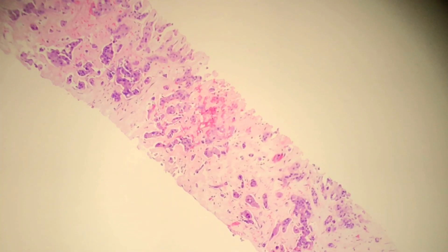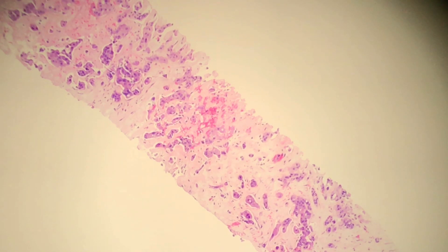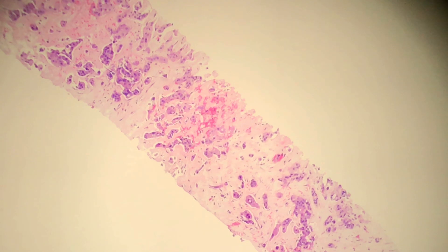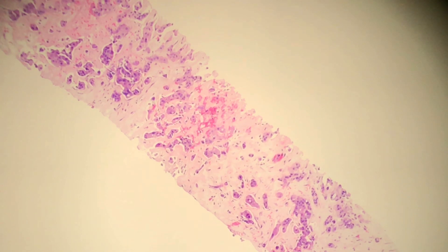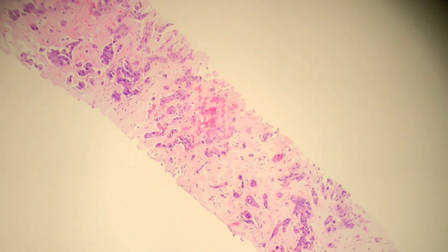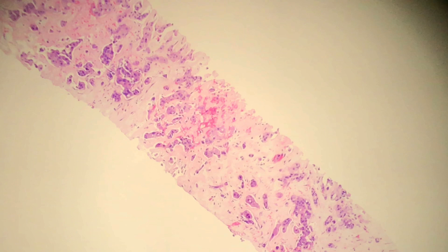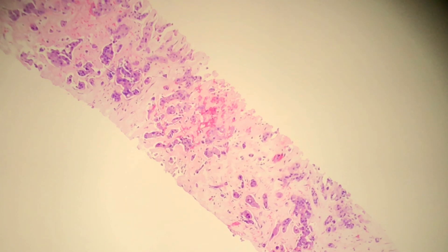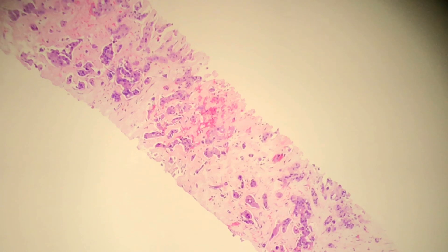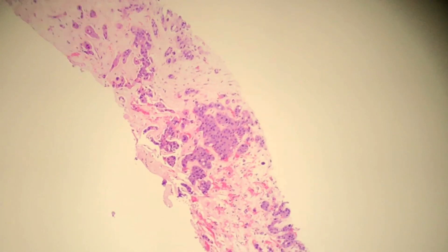Hello everyone. Today we have a little bit of a different lesion for you. What I have in front of me here is a liver biopsy taken in a patient with a somewhat interesting history of an apocrine lesion. So we're going to talk a little bit about invasive apocrine carcinomas and apocrine DCIS, but let's just drive around and talk about what we're seeing here.